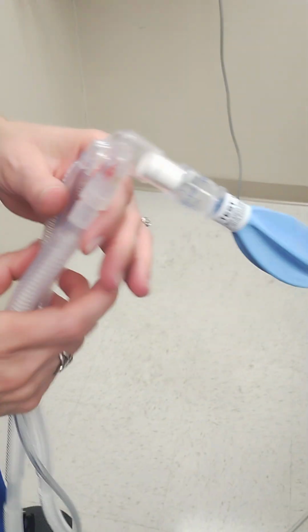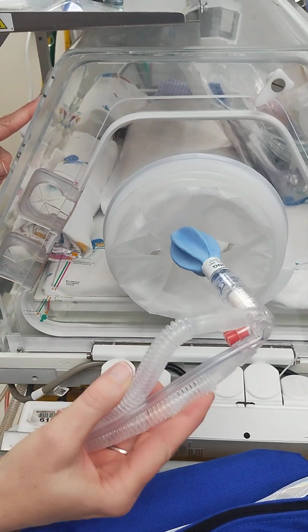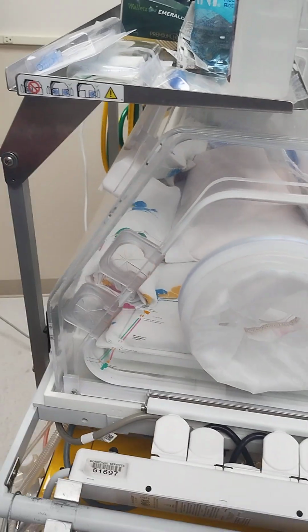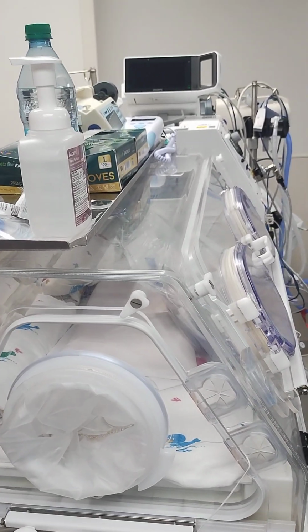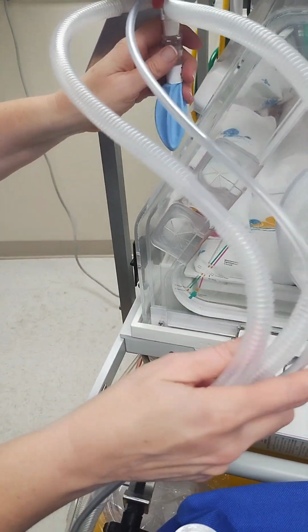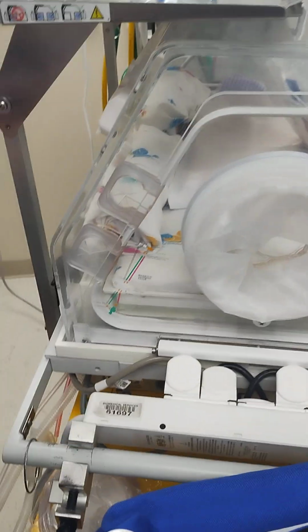One more thing to mention, when the vent circuit does go through this portal, we really want the baby's head down at this opposite end of the bed, because when we raise up the bed, it's going to tilt this direction. So you may have to do a little finagling to get the vent circuit in the proper position up at the opposite end. So just be aware of that.